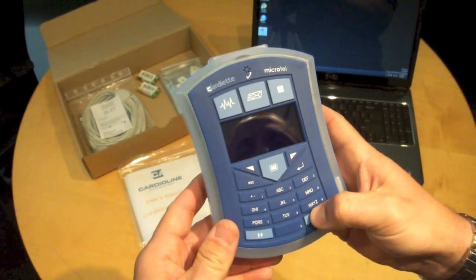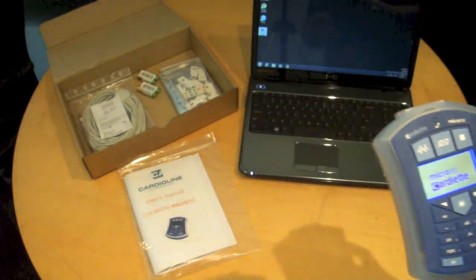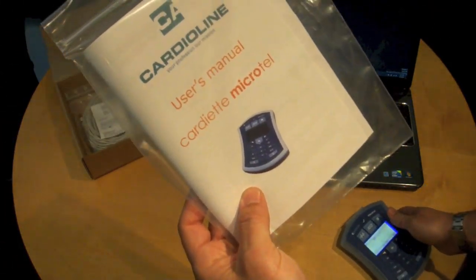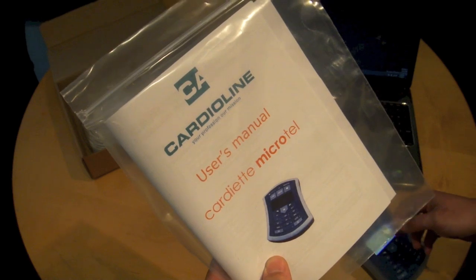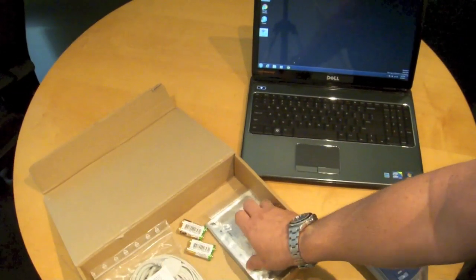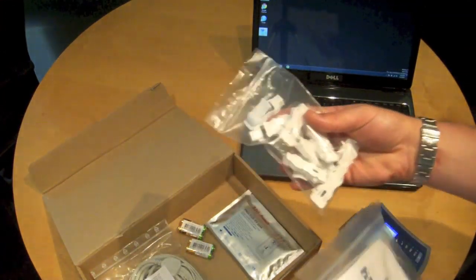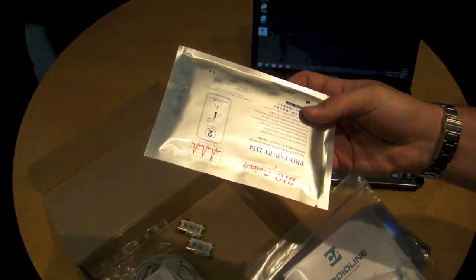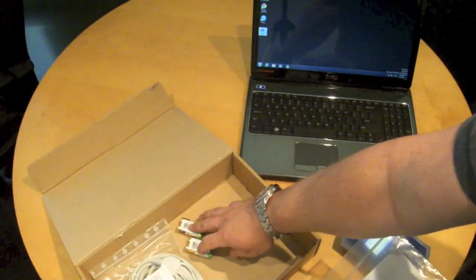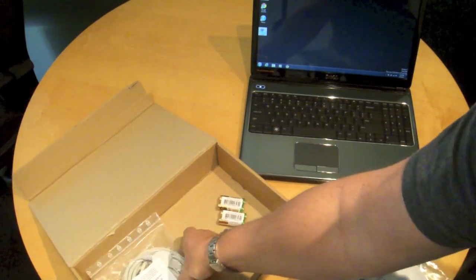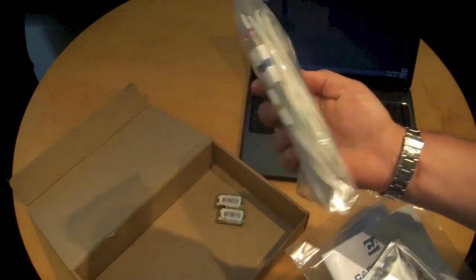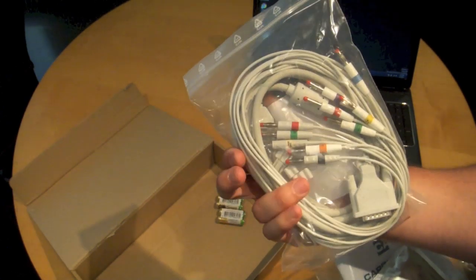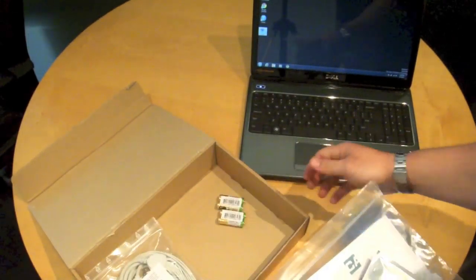I'll go ahead and power on the device here and while I'm doing that I'll give you an idea of what the unit comes with. It does come with a full user manual as well as universal clips for the patient cable, some sample electrodes, disposable style, batteries for the machine and a standard patient cable and some patient cable organizer clips inside.